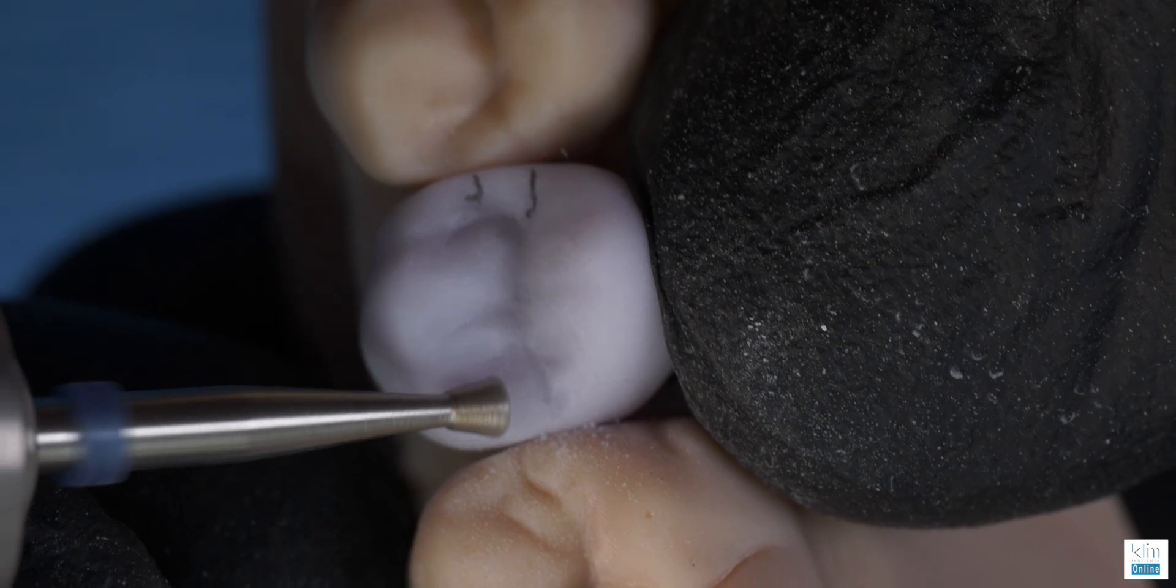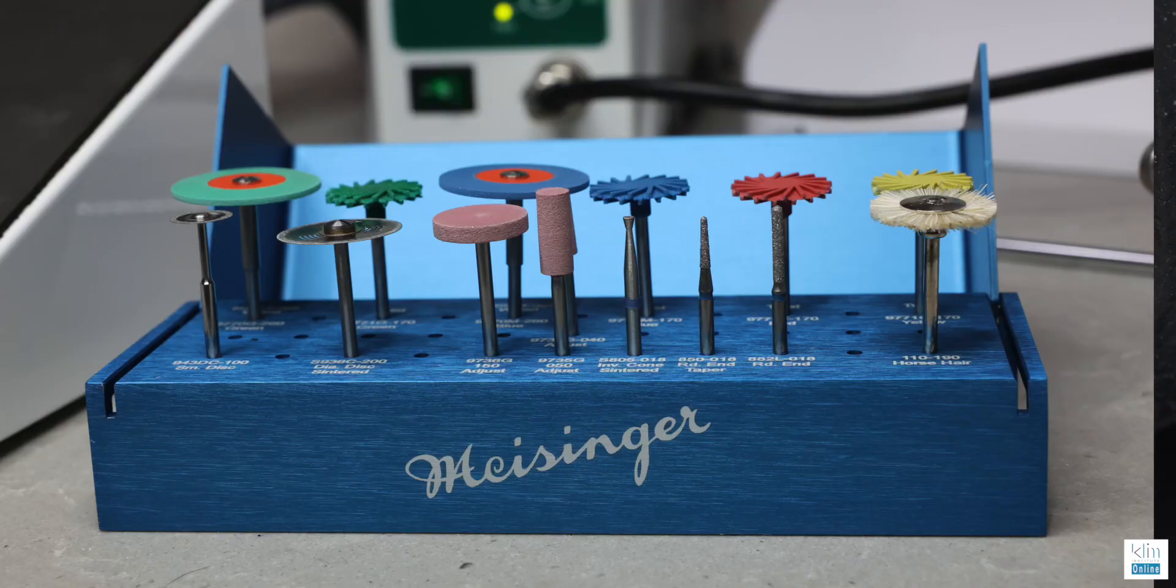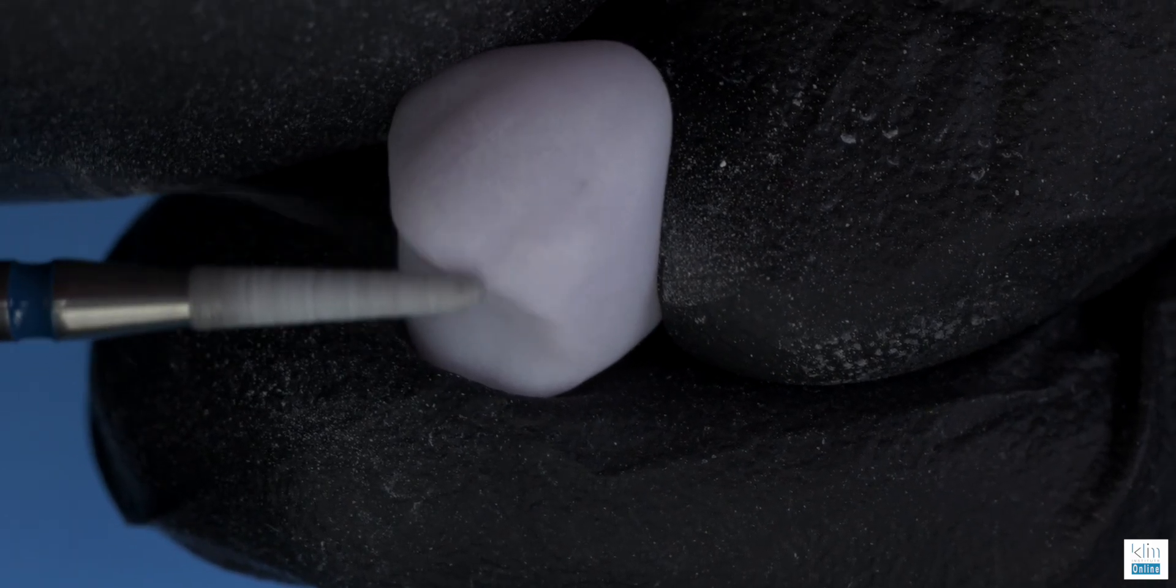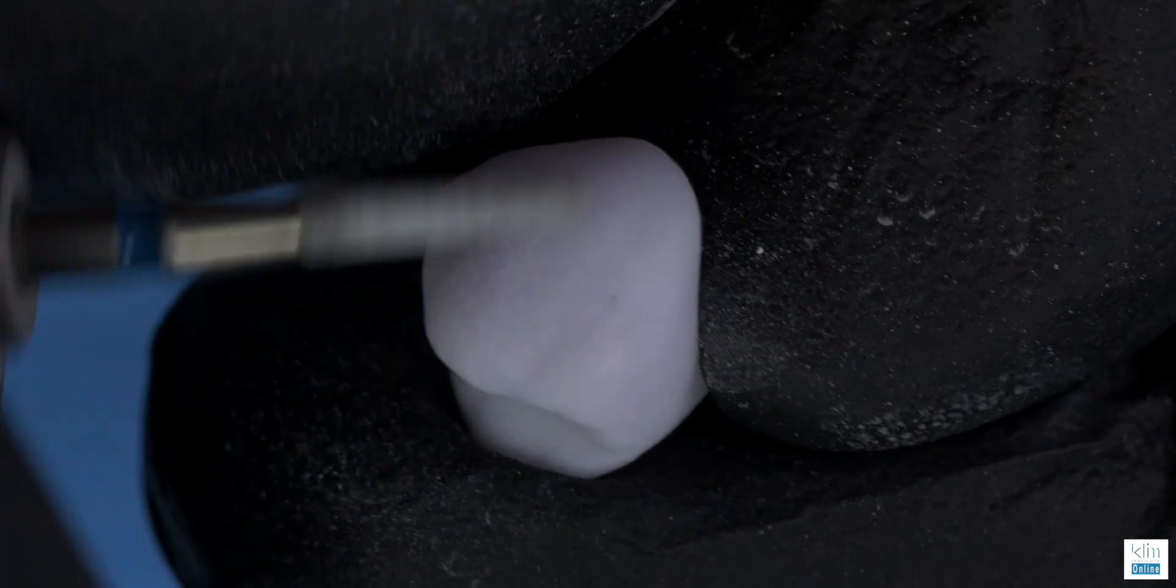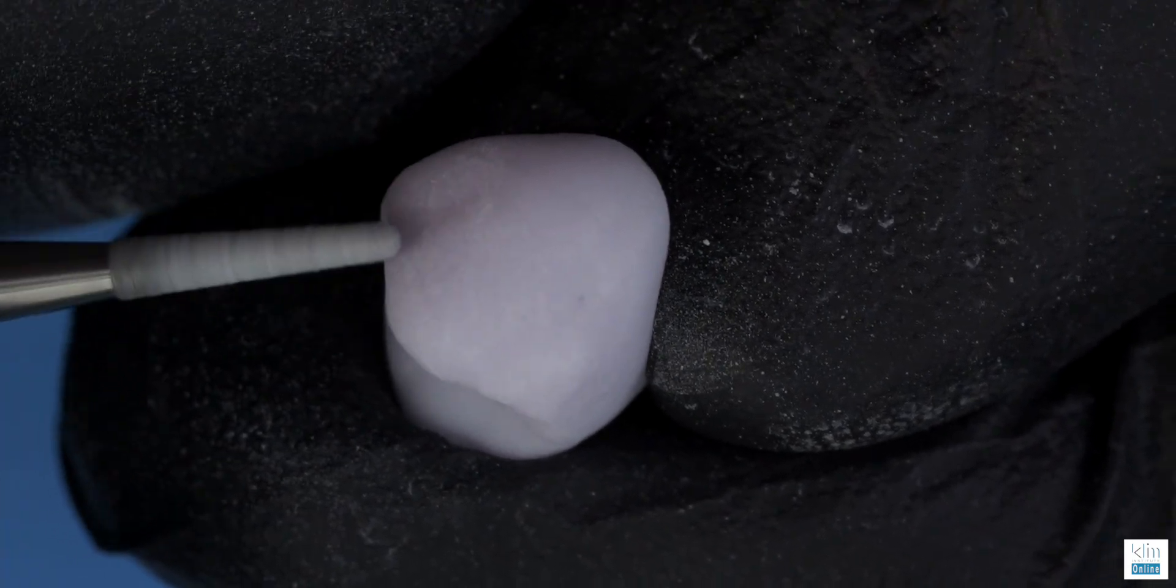I still like to use my lab burrs. It's the JK03 ceramic kit, the inverted cone to refine the occlusal anatomy and also to refine that labial type of anatomy, the primary depressions, the pericamata where you need it just to make it look really natural.